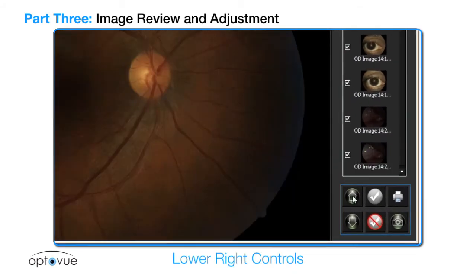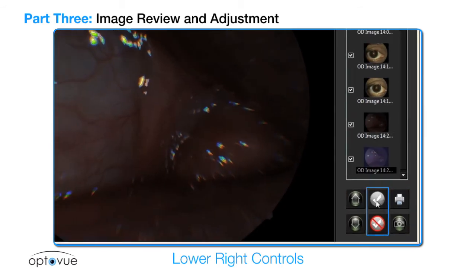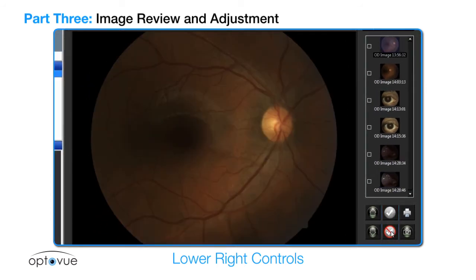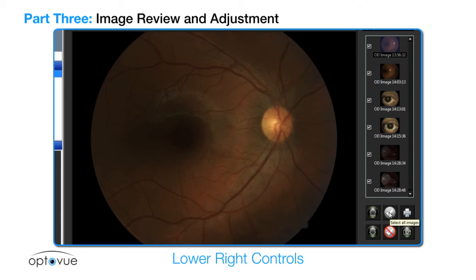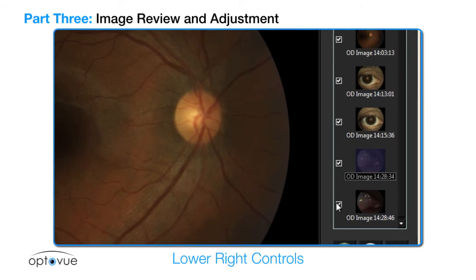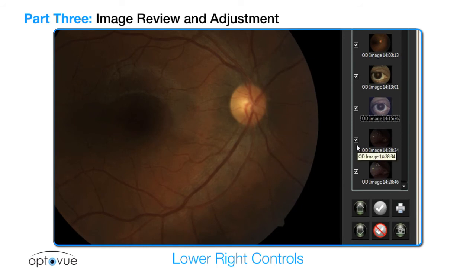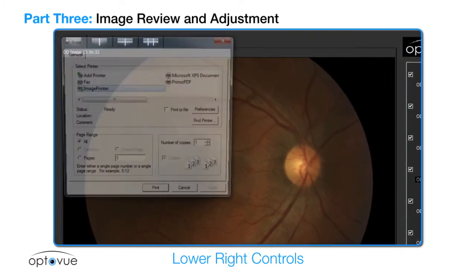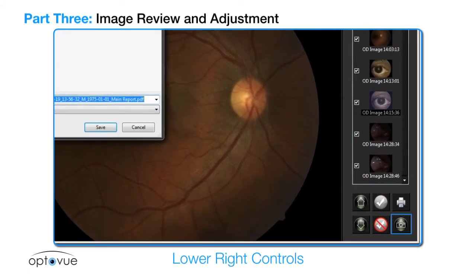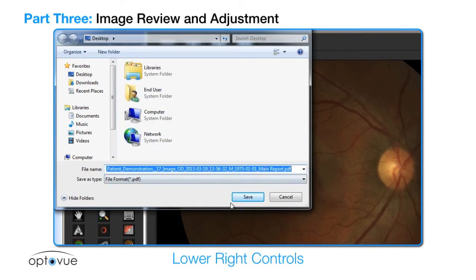Lower right controls: use the up and down arrow buttons to scroll through the selected images. The check and uncheck buttons allow you to select or deselect all images. Individual images can be selected or deselected by clicking the box next to the image. The print button sends the image to the print function, and the camera button opens a field that allows a PDF named with patient information to be saved to a folder of the operator's choice.